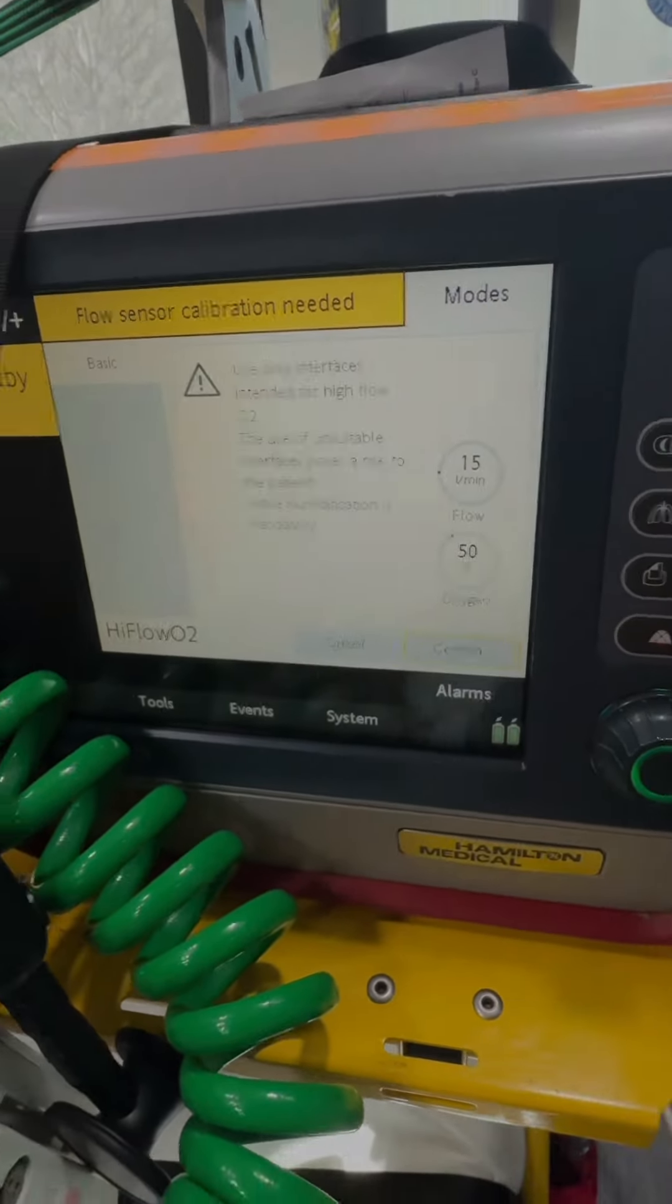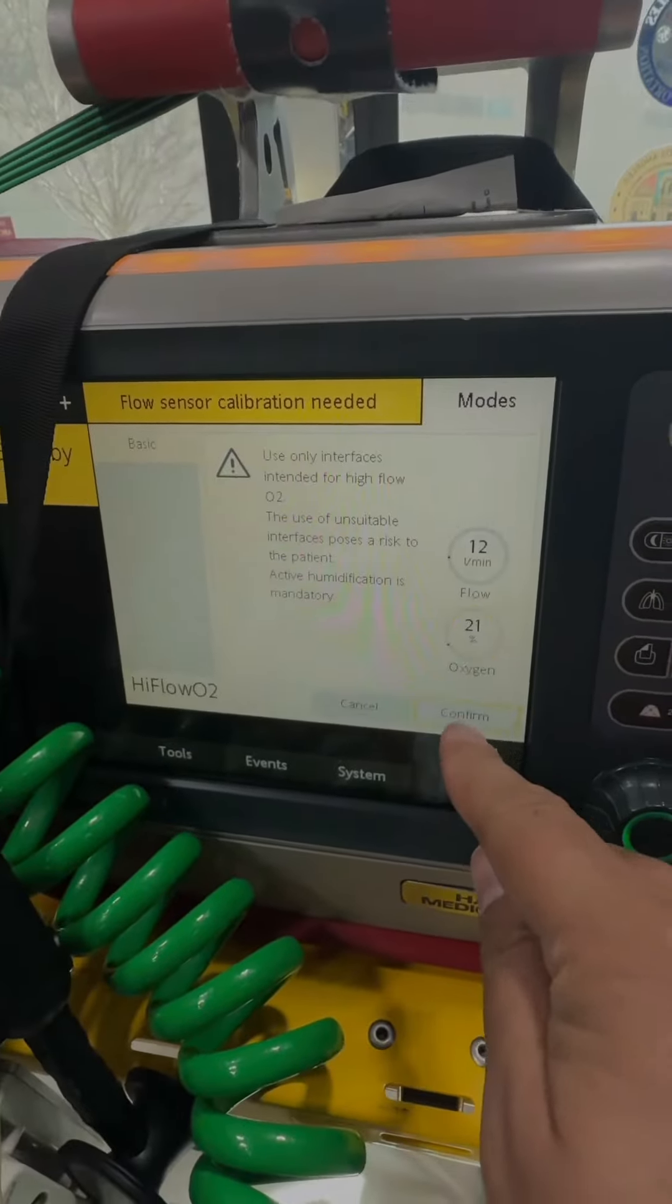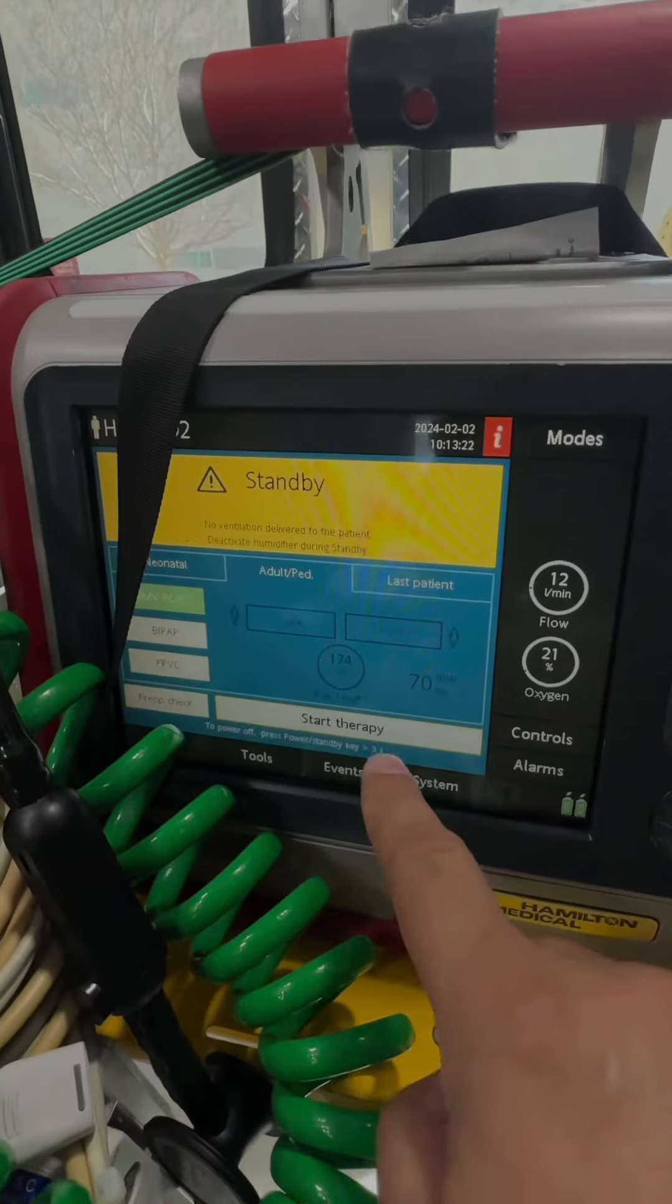Confirm. Then you can dial in your flow, confirm, and then you can start therapy.